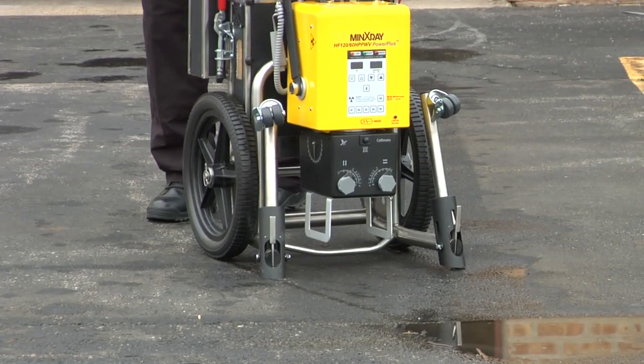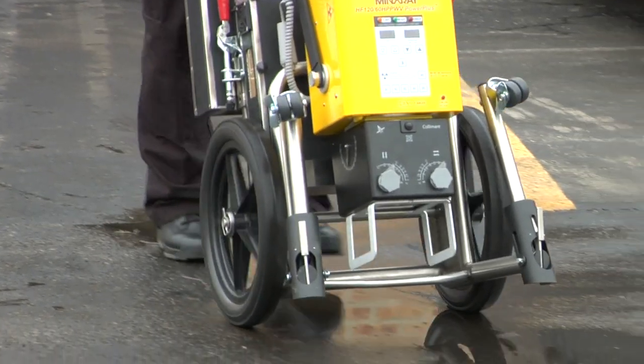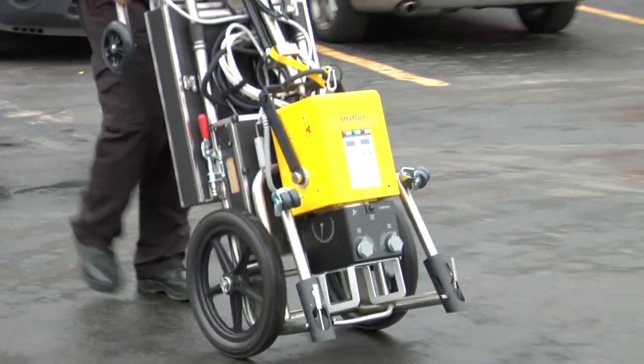This video will demonstrate how to retrofit a Min X-ray HF120 Power Plus X-ray unit into a fully functioning direct radiography system.